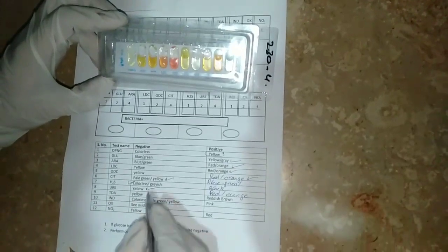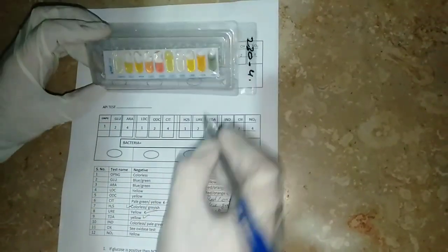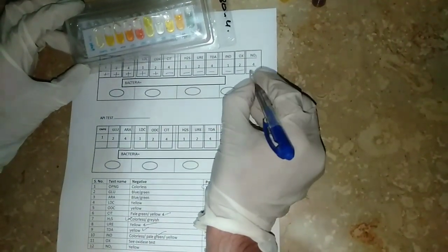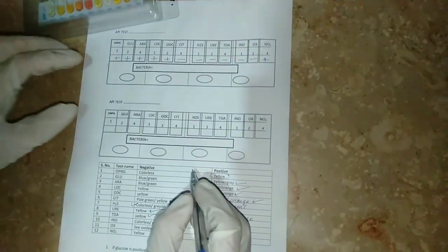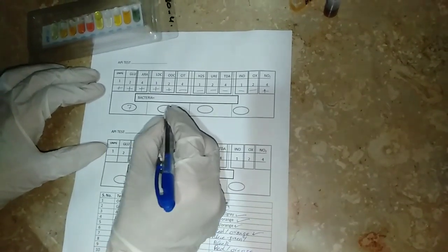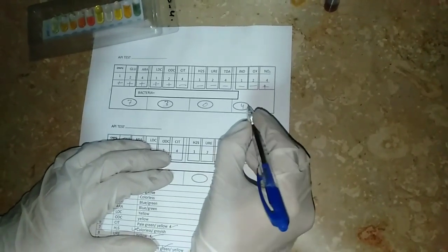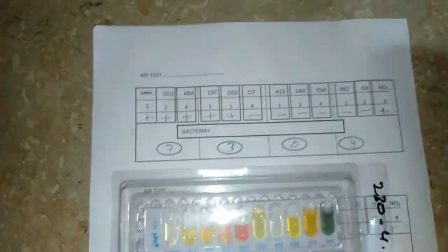TDA is also negative, write negative. Indole should be pink but is green, so also negative. Oxidase, which I already performed, is also negative. NO2, which I already performed, is positive because glucose is positive. So we get a code: the first group gives 1+2+4 = 7, the second group gives 1+2 = 3, the third group is all negative giving 0, and the fourth group gives 4. The code is 7304.